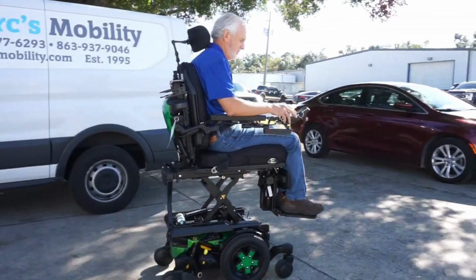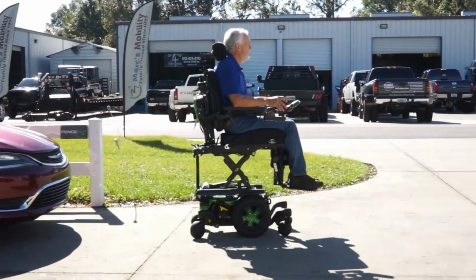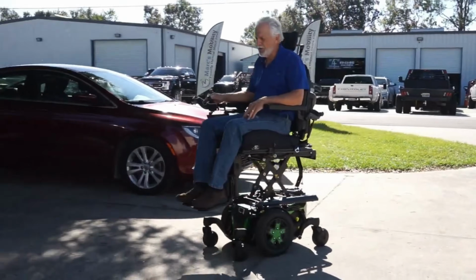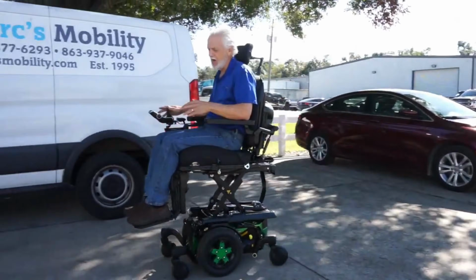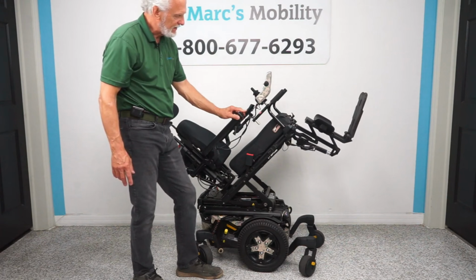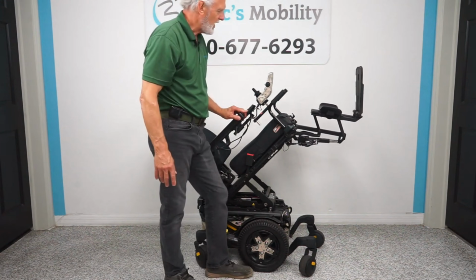So people that call, let's say they're 5'7", 220 pounds, well, a 17-inch back is going to be a little too narrow for them, so you might have to have an 18 or a 19-inch back. Well, now your outside of armrest measurement is going to be closer to 24. So we typically recommend, unless you need that 17-inch back or smaller, that you look at an Edge 2.0 or an Edge 3. But if you are small and you do want something that can navigate with the smallest overall width, and you are a small individual, then the Stretto would be a great option.